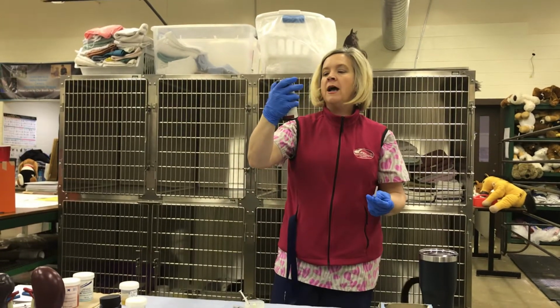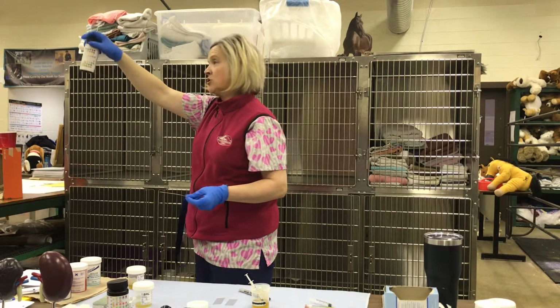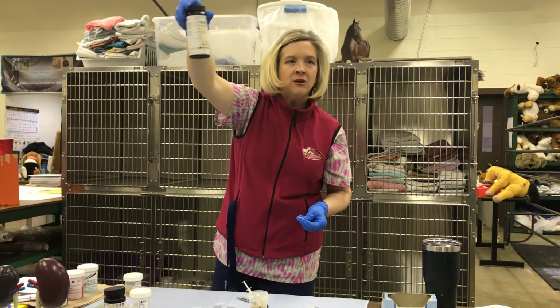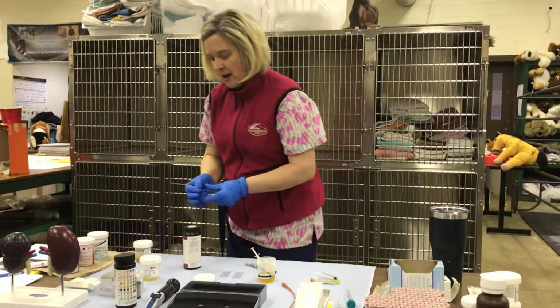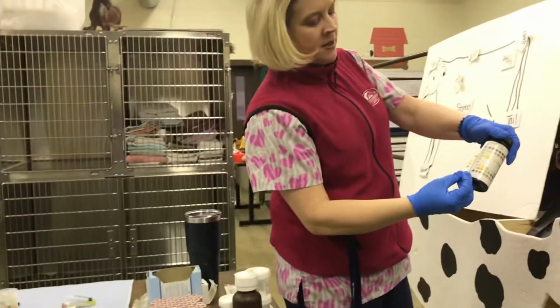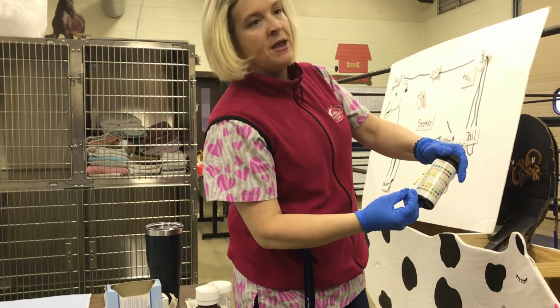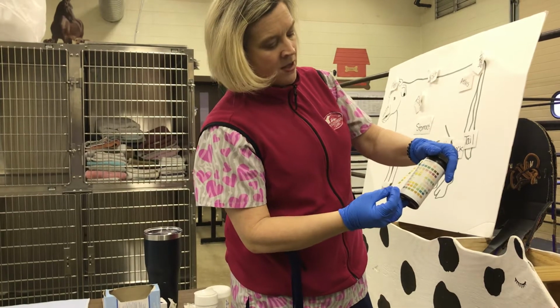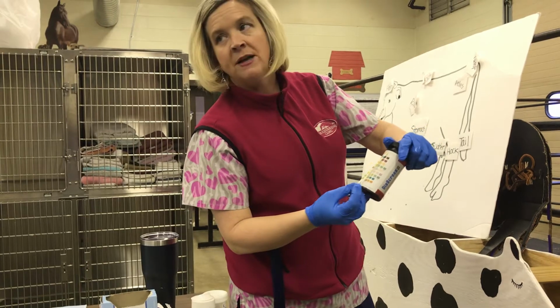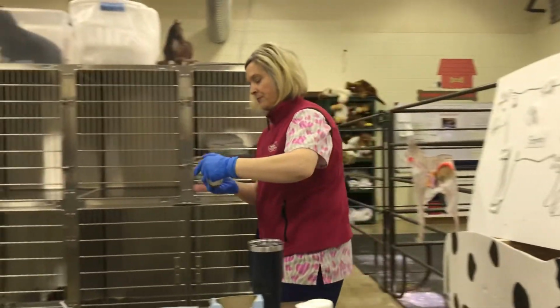Remember that you are matching your urine dipstick to where it's located on the actual results. At the bottom or the top, there's a little square that says place the handle here. Make sure it matches up, and go right along, like where it says glucose. See how blue it is? That means it's negative. Protein is a bright green, and we try to match that the best we can. That's 1+, so that's not something we're going to be too concerned about.